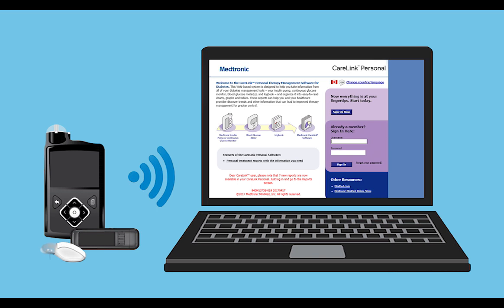The CareLink Personal system now has a new way of uploading. This improved experience requires fewer updates and is easier to set up and use. The new uploader replaces the old Java method.